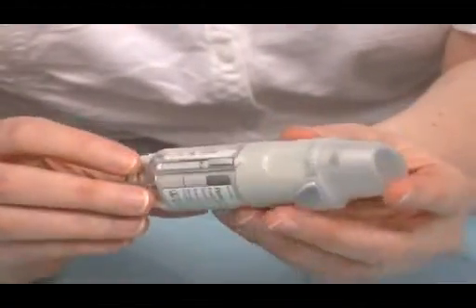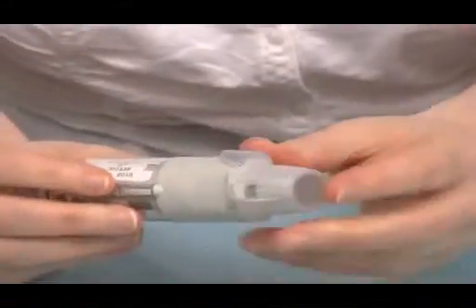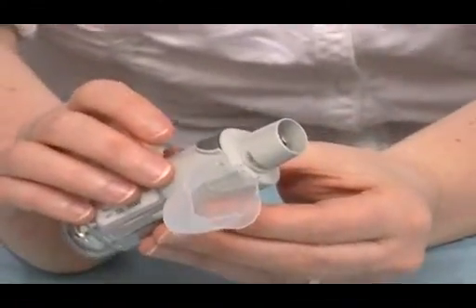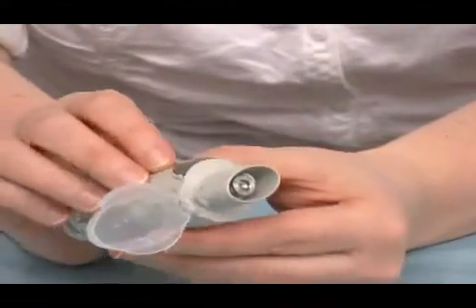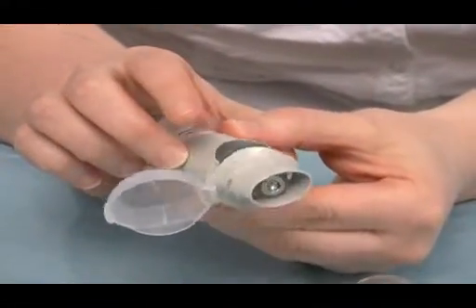When it comes to using the inhaler, the patients would press and turn the inhaler, open up the mouth cap cover, take a breath in, breathe out, seal their lips tightly round that, start to breathe in while depressing the grey button, and this releases the medication.